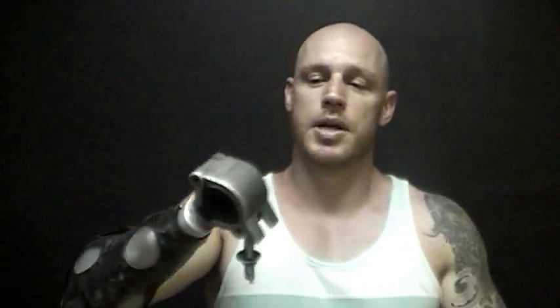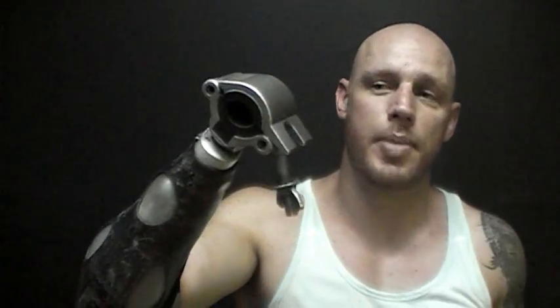There's another attachment — it's basically a clamp. It goes on the arm, locks in, and you clamp it down with a butterfly clip. Because it clamps over your elbow, you're not going to be able to go full extension, so for pushing exercises this isn't great.